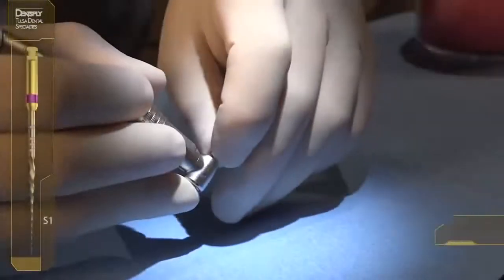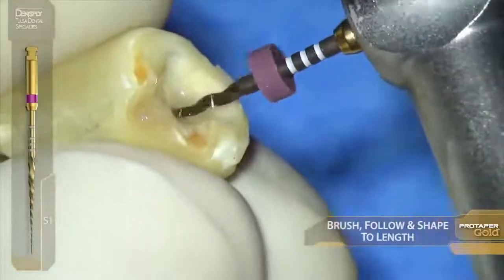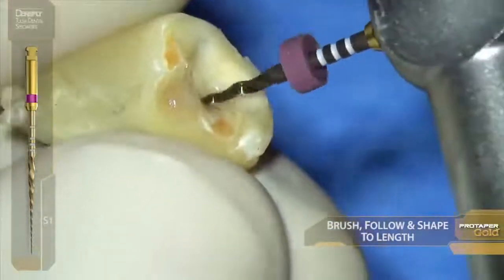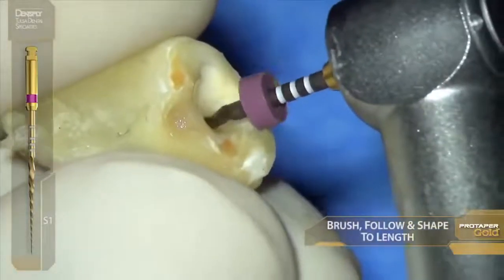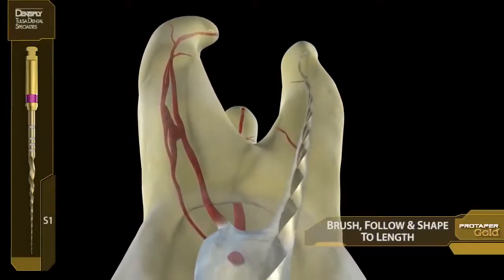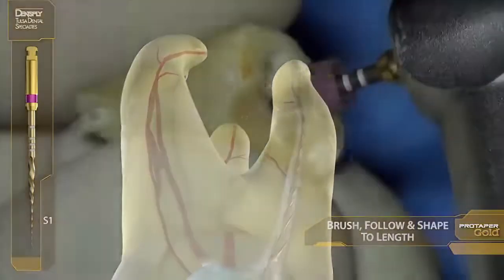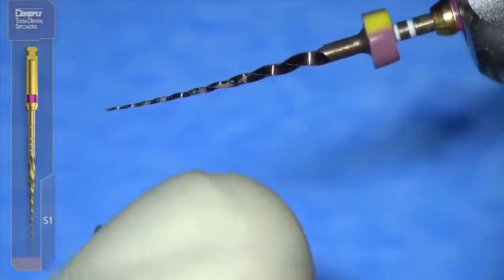It's time to remove restrictive dentin and connect the dots. Purple S1 — watchwords are brush and follow, brush and follow to length. Brush and follow, brush and follow. Notice the restrictive dentin is removed.